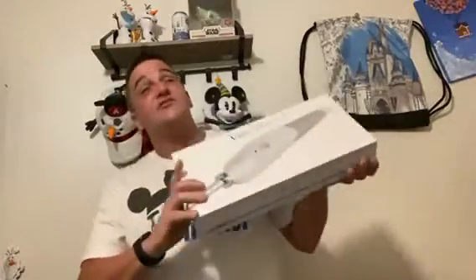Today we are going to be doing an unboxing of my WeWalk smart cane. This is the one you've seen in my previous thank-you video where I thanked everybody that helped me receive this, and helped others get theirs as well. I got mine in, so let's unbox it!